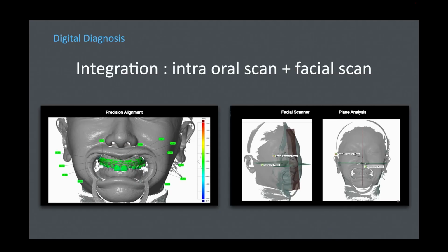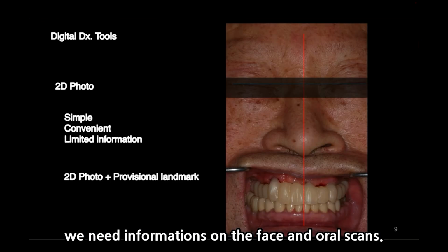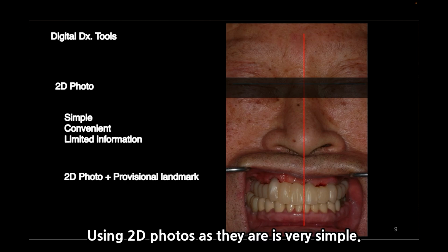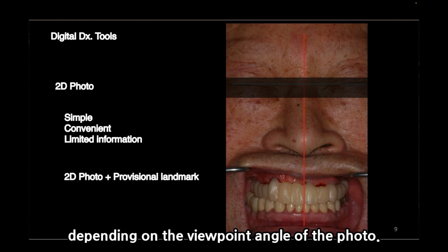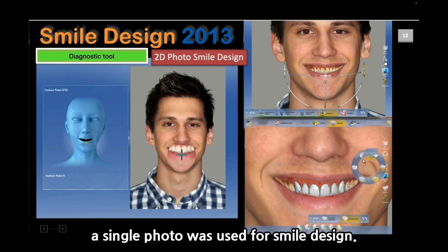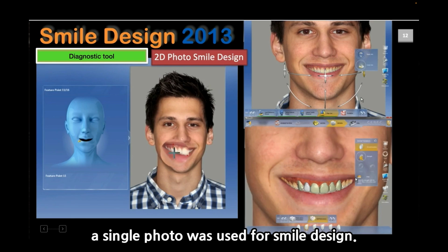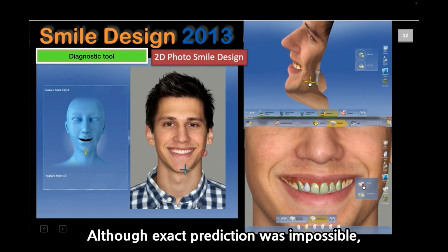To construct a virtual patient, we need information from face and oral scans. Using 2D photos as they are is very simple. However, be careful as there may be errors depending on the viewpoint or angle of the photo. Even 11 years ago, a single photo was used for smile design, although exact prediction was impossible.